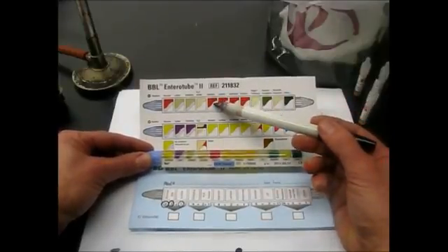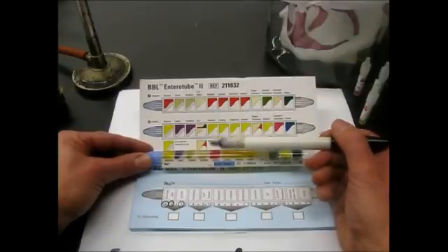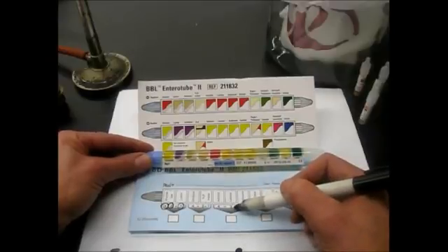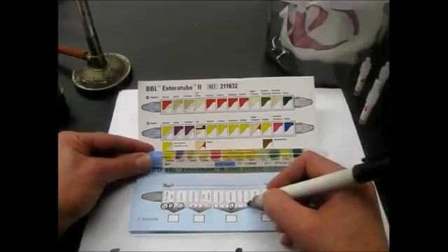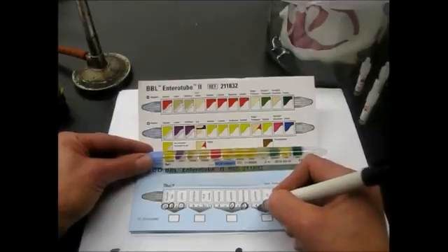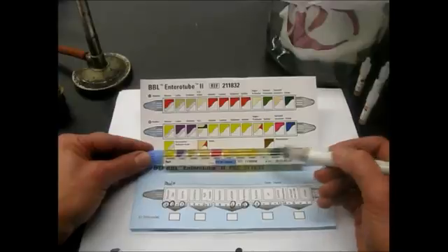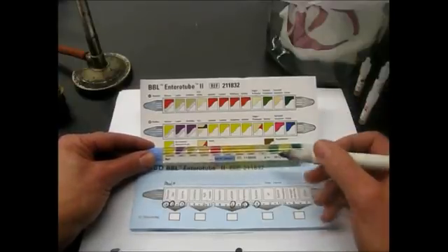For adonitol, ours is identical to the uninoculated, so that's negative. For the lactose test, we do have a positive result on that one, turned yellow. For the arabinose, we have a positive arabinose test. Sorbitol on this one is positive as well. The next compartment is for the Voges-Proskauer test, and we have to add some reagents to that as well. So we're going to hold off on that one for a minute.